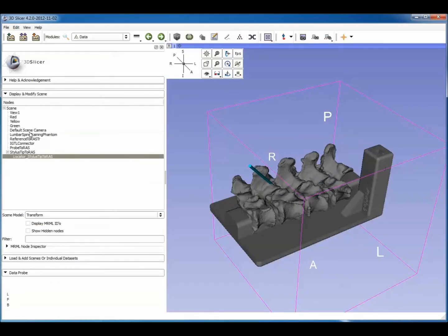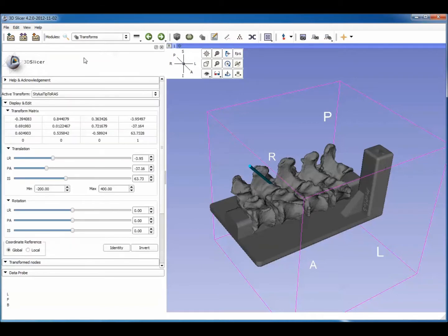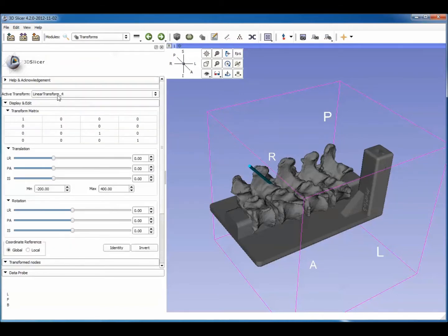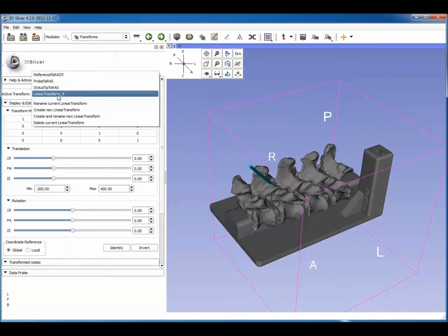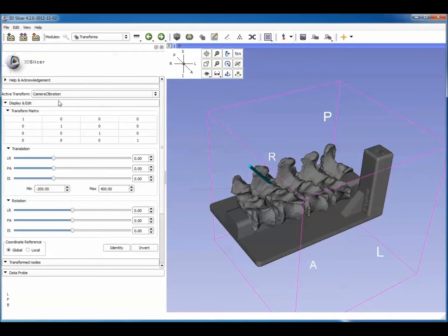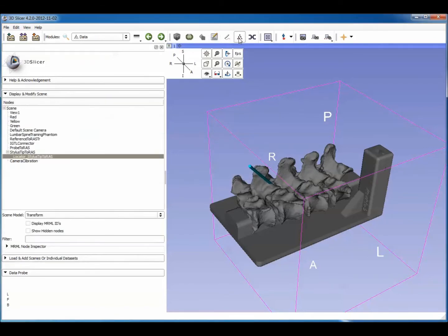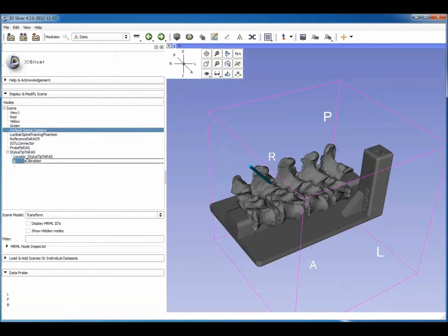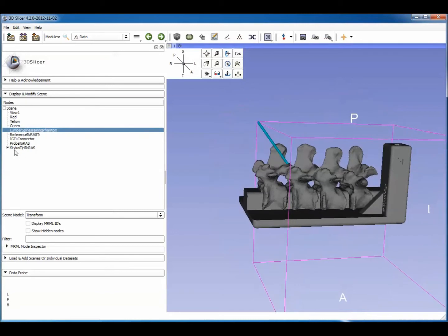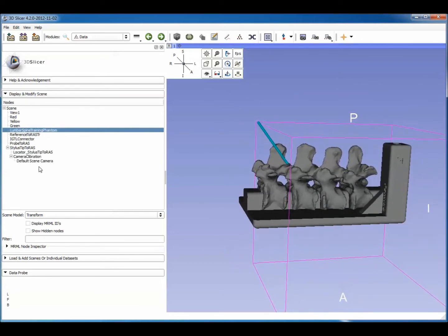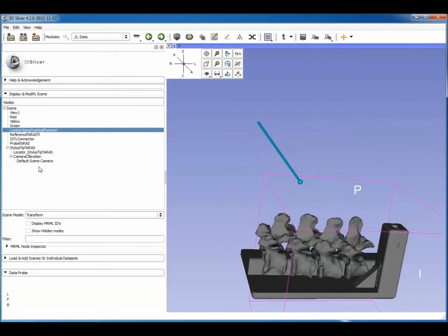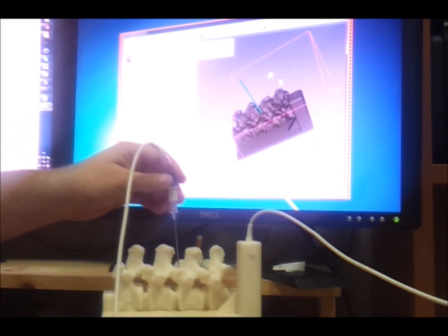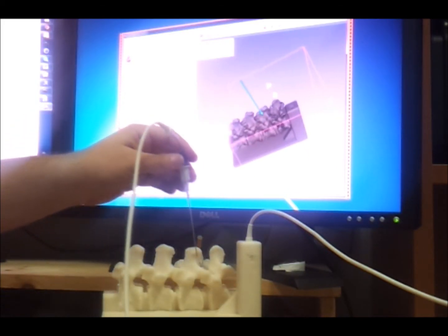Now we're going to turn this into a virtual endoscope by putting the camera node on top of the needle tracking transform. But between the two, we need to adjust the camera calibration matrix. I've created a linear transform on top of the needle tracking transform, then put the camera node on top of this camera calibration transform, so the camera calibration is currently an identity matrix.